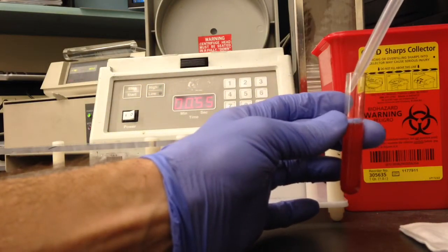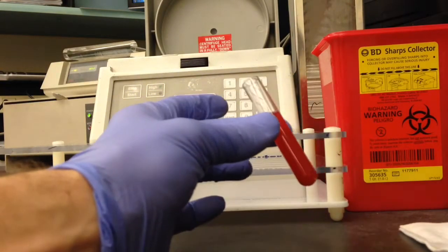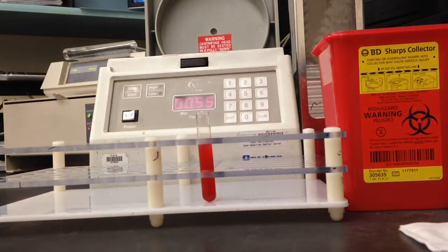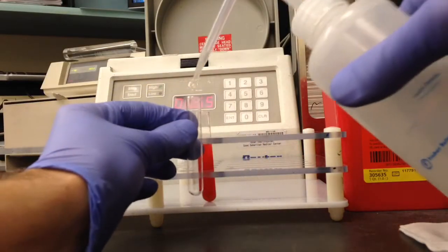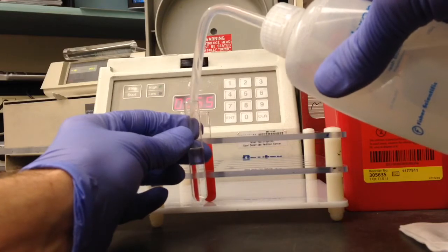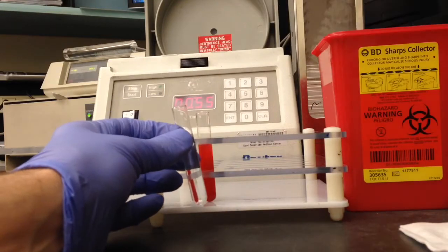So go ahead and fill up your specimen tube with quite a bit of saline and then you're also going to need to have a counterbalance tube for your centrifuge. So make sure you fill that up to approximately the same level so that everything spins well.